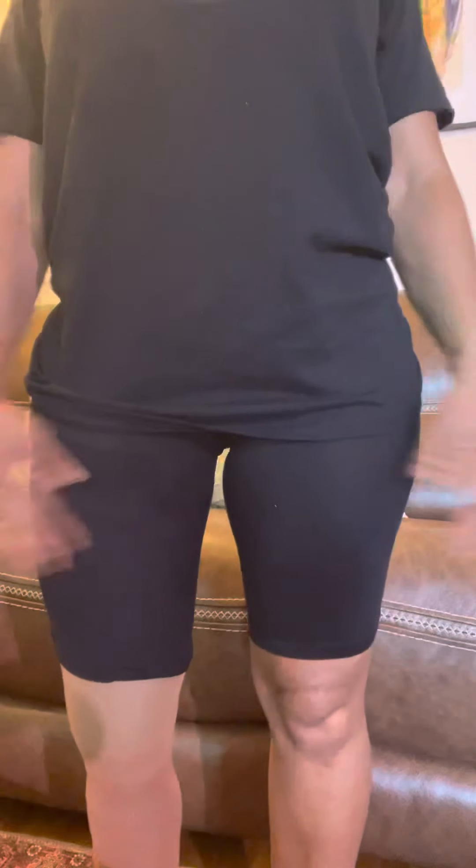And voila — there you go, that's how you do it! Got a nice fit. I can hold that leg up, hold it back, and it's not going anywhere. You could kick somebody — don't kick anybody — but you get the message. Pull into that leg with an ace bandage and it'll give you a real nice snug tight hold. Peace.